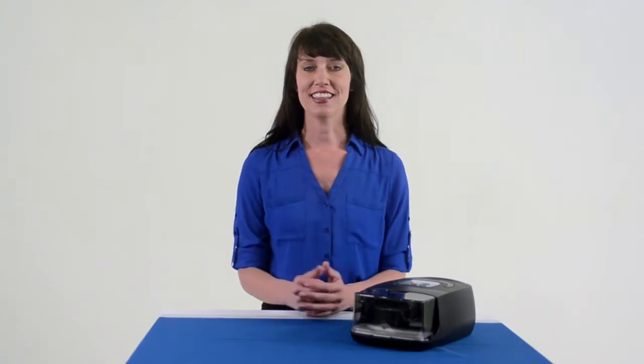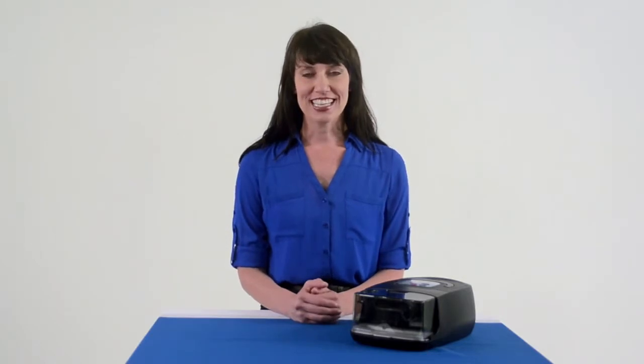Please note, anytime you make a change, you must scroll through the menu to the end and get to the Save selection. You must confirm your changes by pressing Ramp at the prompt to save. If you do not perform this step, no changes will be accepted. You can get to the Save selection by moving forward or backward within the menu. Okay, let's quickly view the available settings in this menu, and remember, you can learn more detail about each of these settings in the user manual and/or patient setup card.